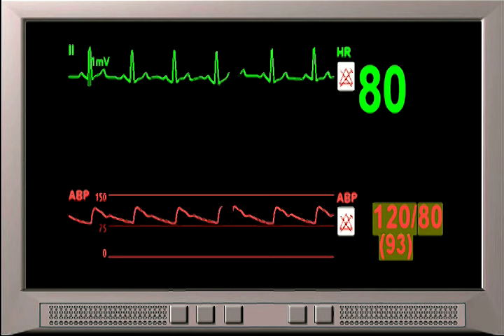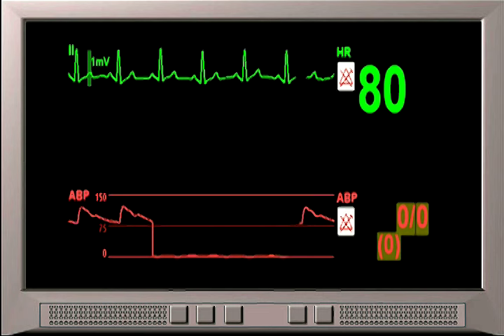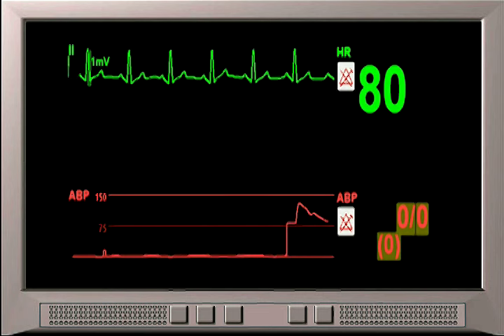Step 4: select the zero function on the bedside monitor and confirm that the bedside monitor's pressure channel waveform and numeric value display zero.